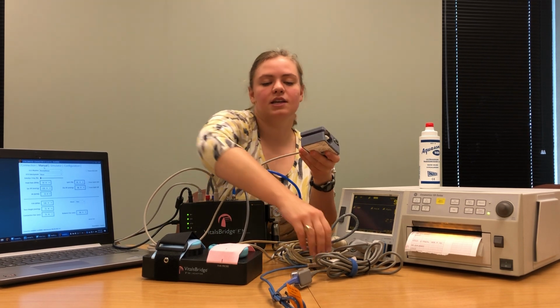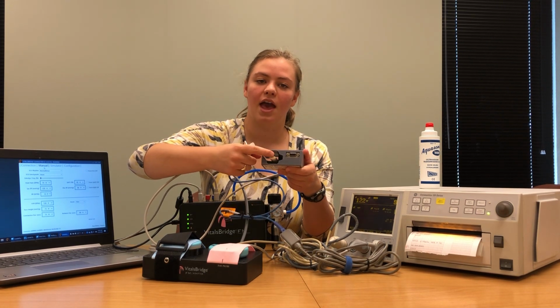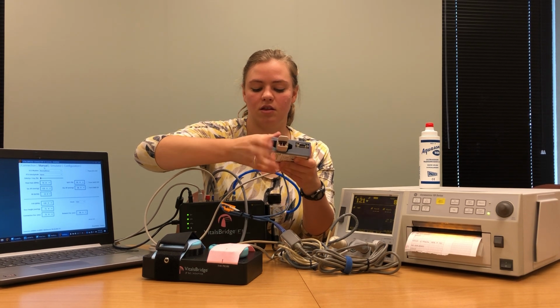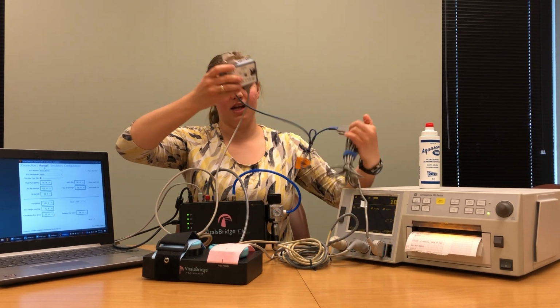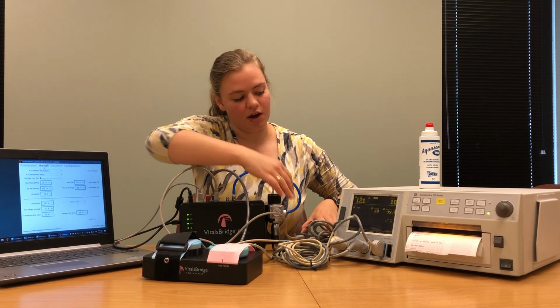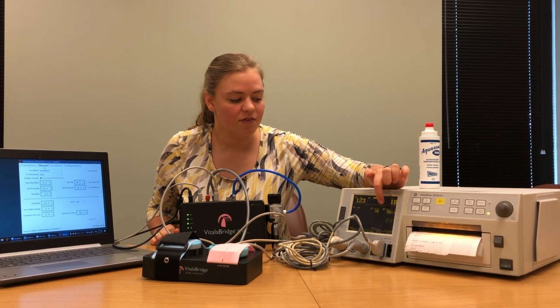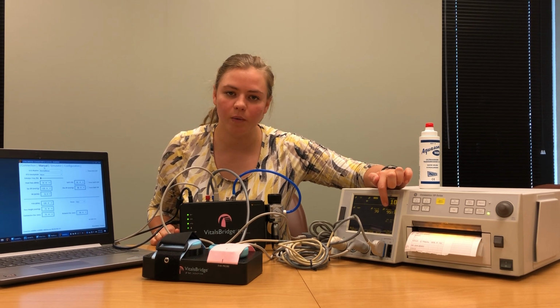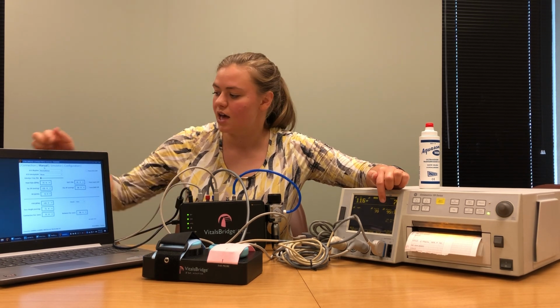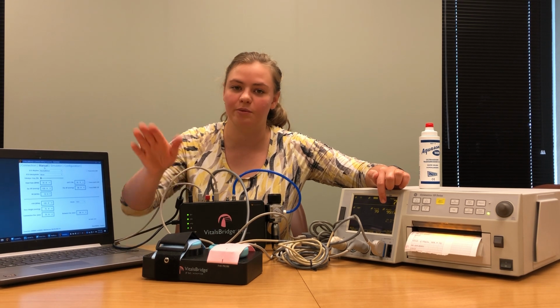When that's been plugged in, take the SPO2 probe you've already verified works on your finger and place it over the white finger in the oximeter adapter box. Once that's been properly connected, give the patient monitor a moment to initialize and you should see an SPO2 reading here. If the SPO2 saturation level is not what you would expect from what you've put into your connector software, that's really easy to fix. Come to the Configuration tab and perform a calibration the same way you performed the calibration on the Toco.